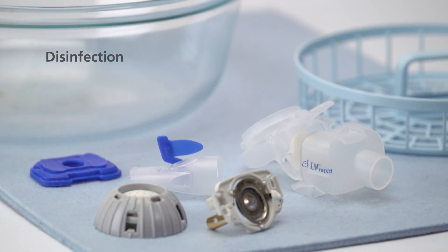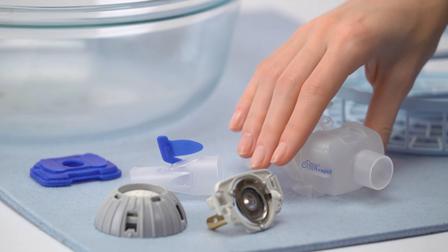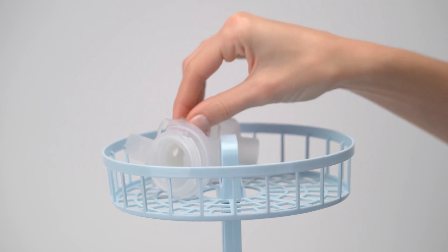Disinfect the nebulizer handset parts and the aerosol head at least once a day, for example at the end of the day immediately after cleaning.